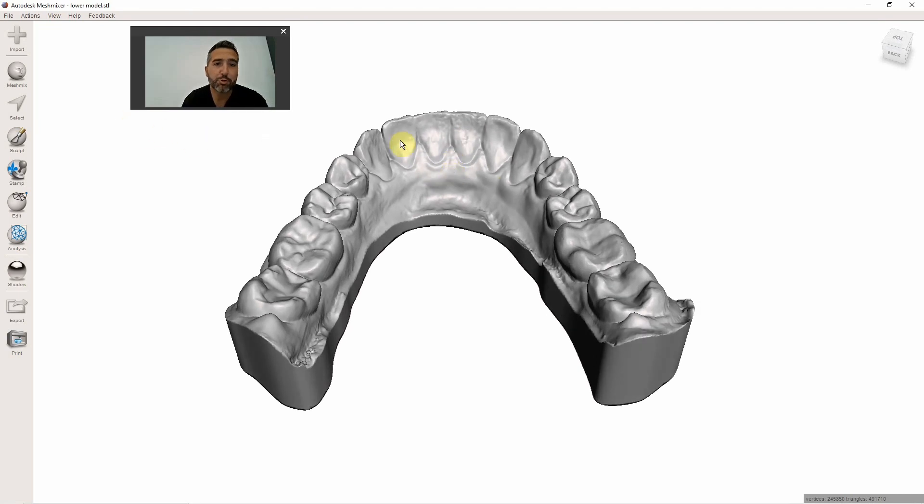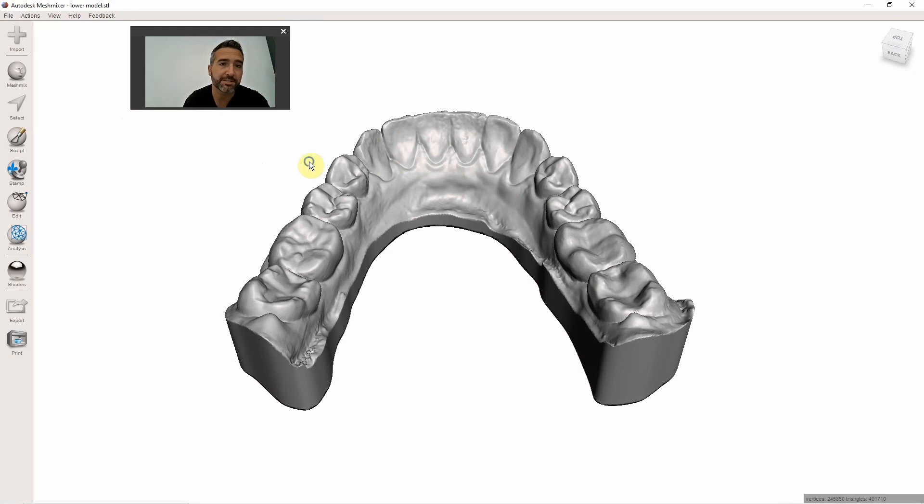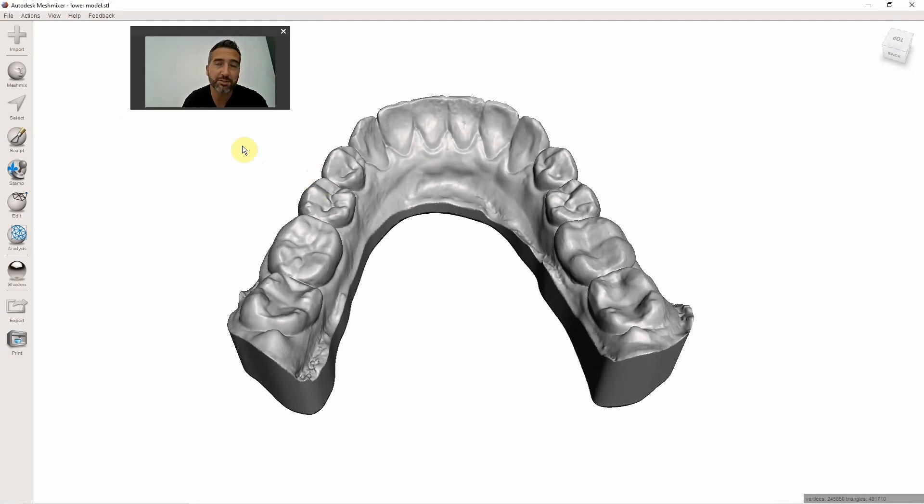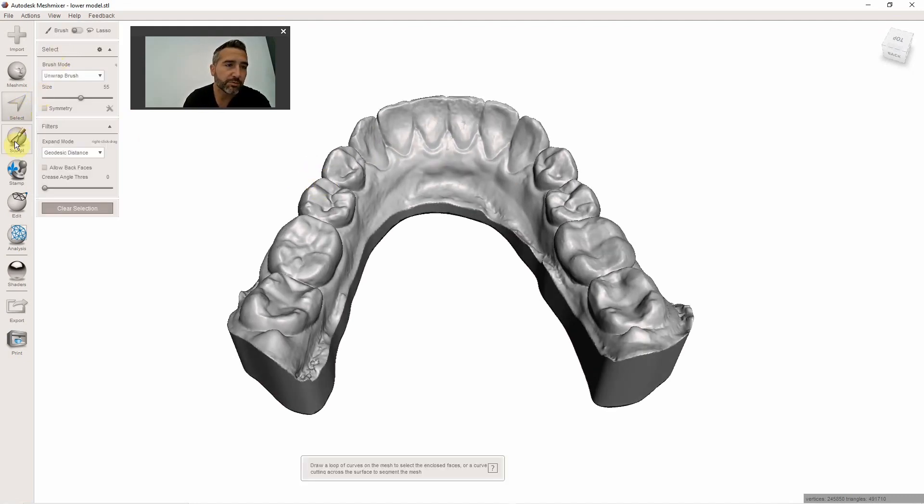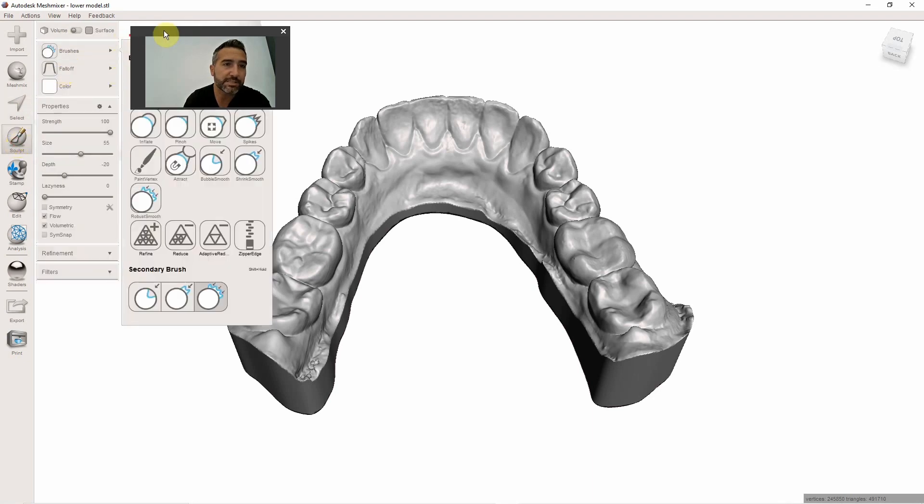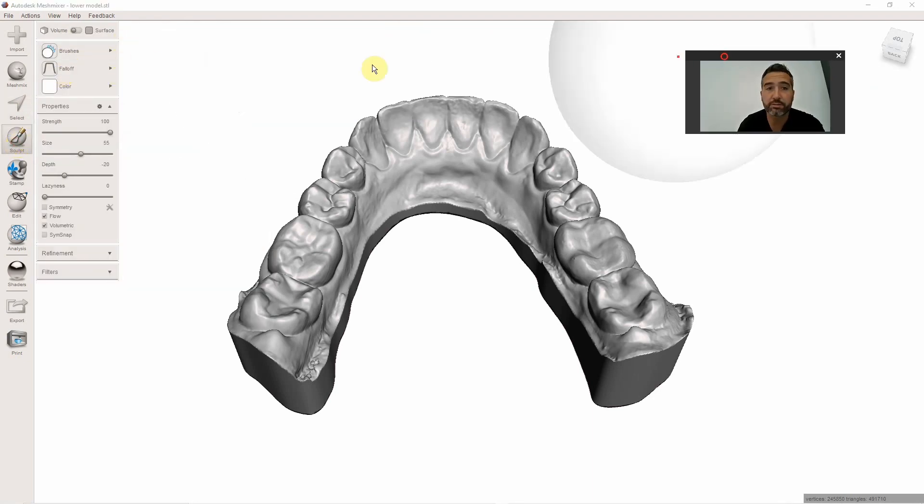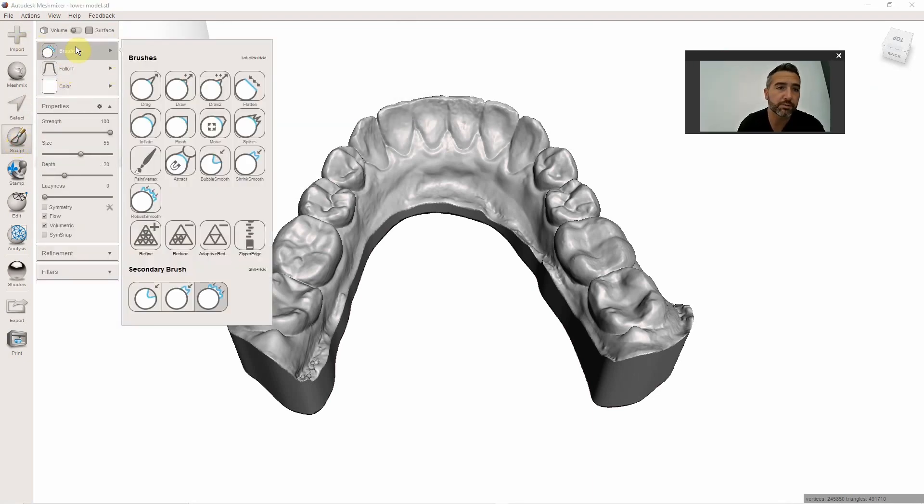What I'm going to do is run through how I do these. These are phenomenal, these little bonded retainers. You're going to love these things because they're the easiest thing in the world to 3D print, and you can design them in under a minute. So here's what you do.